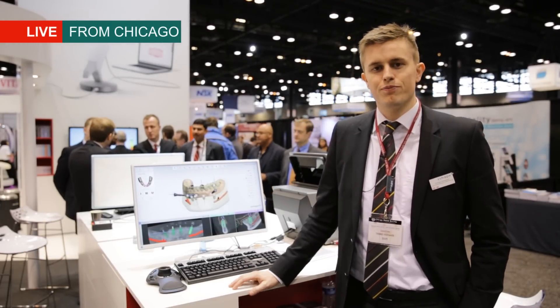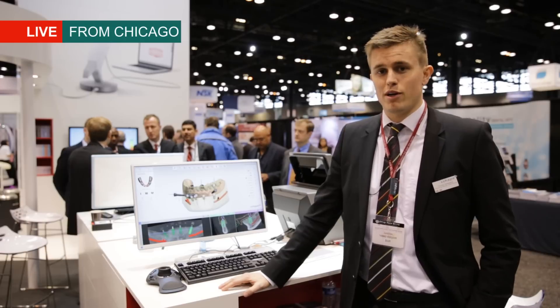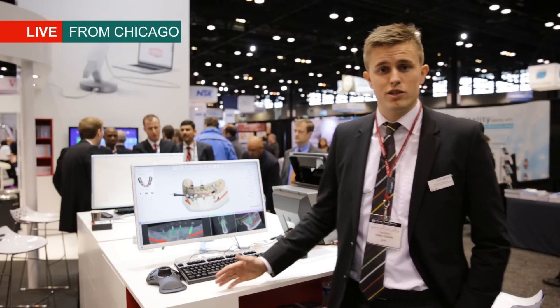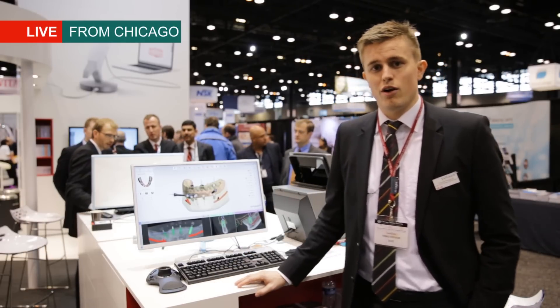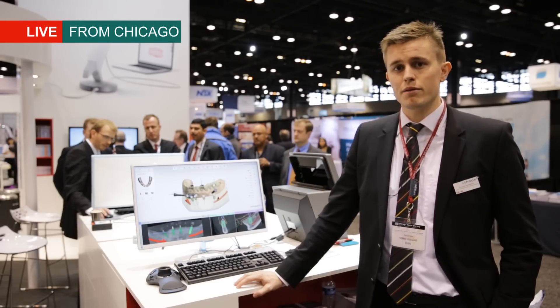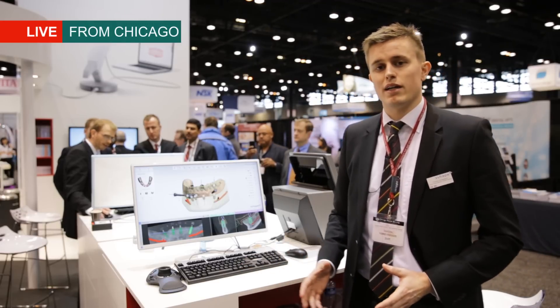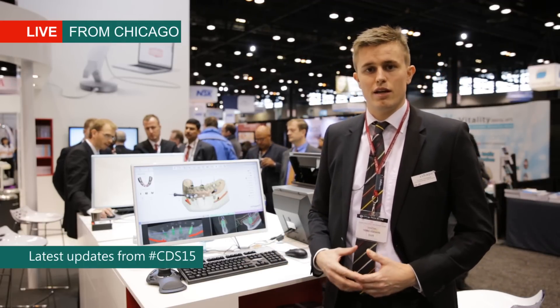We're here at the Chicago Midwinter and the show opened today. We've been here at the booth for about four hours now, and I've had a lot of dental professionals coming up to me showing great interest in Implant Studio, our implant planning and surgical guide design software. It seems that one of the big concerns right now is about efficiency and how to provide better implant treatments in general.